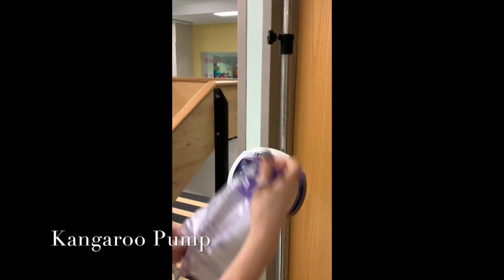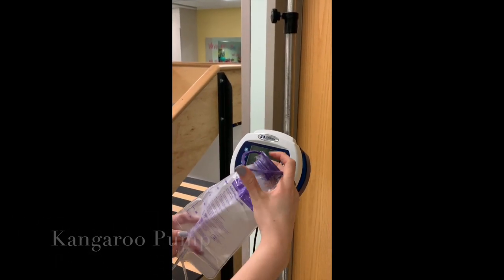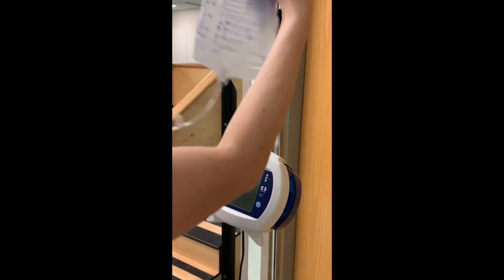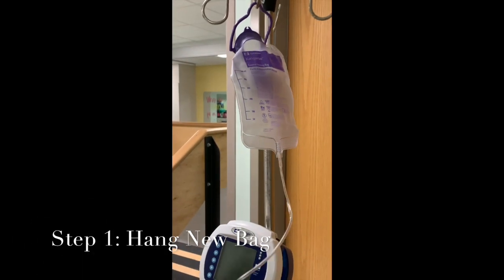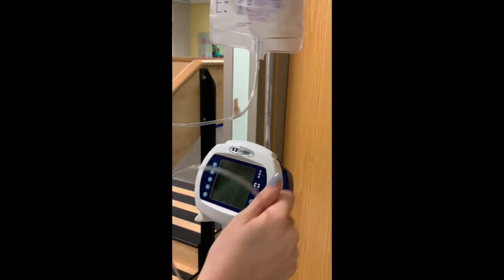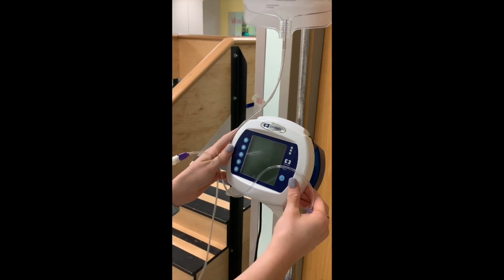All right, so now I'm gonna show you guys how to set up a kangaroo pump, and this would be for feeding, for enteral feeding. So like using a G tube or an NG tube. So this is our pump. This is our bag and tubing setup. So first I'm gonna show you how to load it.